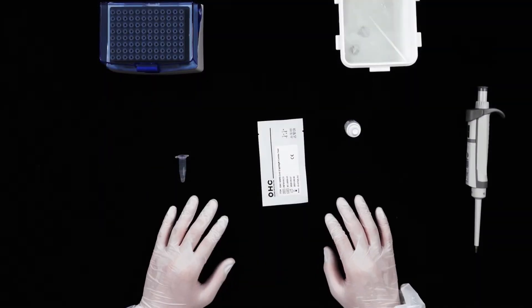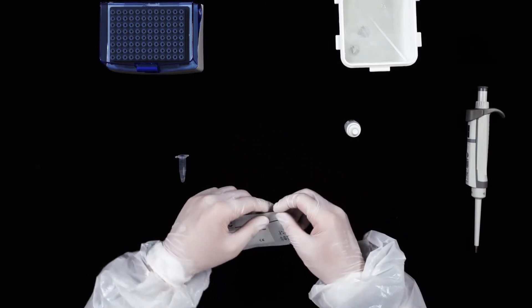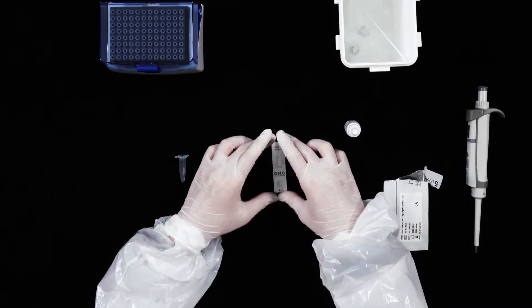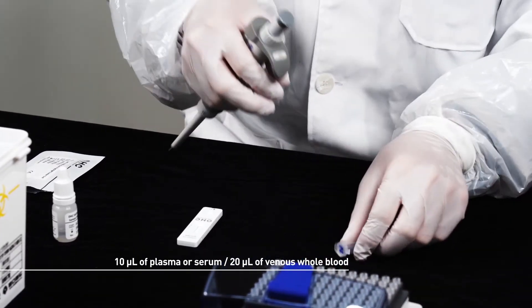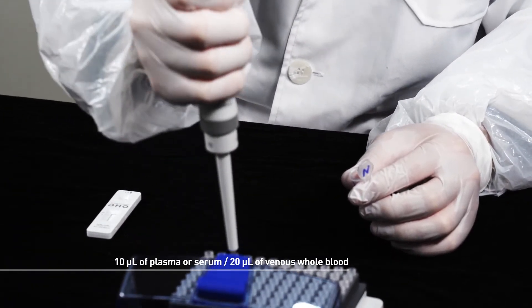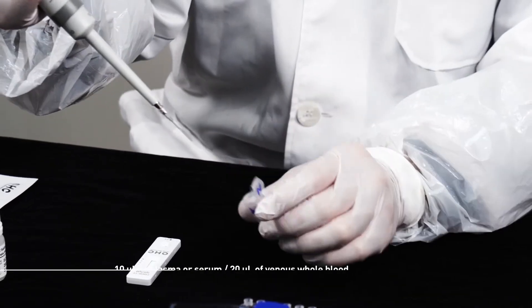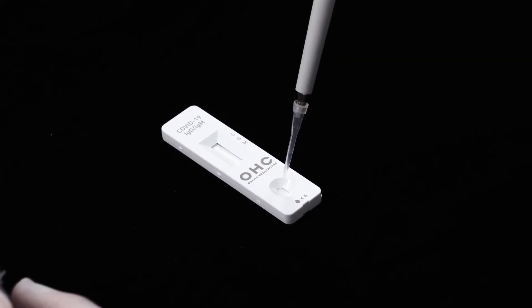First, open the pouch at the box and take the cassette out of the pouch, then place the cassette on a clean and flat surface. Next, add 10 microliters of plasma or serum, or 20 microliters of venous whole blood specimen into the sample well of the cassette using a pipette.